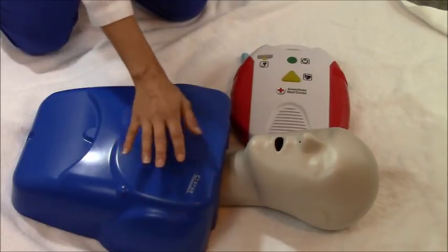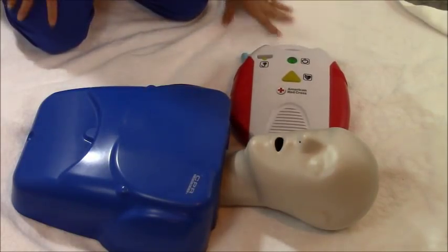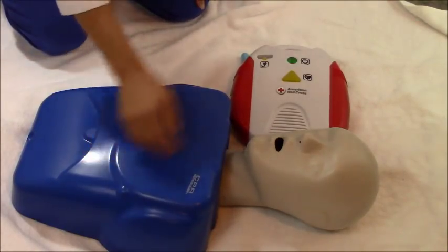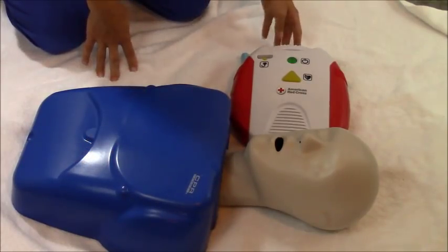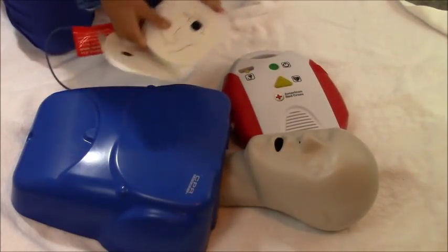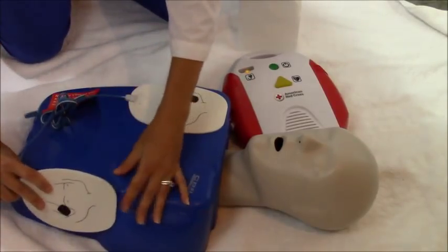If the patient has a transdermal patch — nitroglycerin, morphine, or any medication patch — take it off and wipe the area clean, because it could burn the skin. The first thing to do is turn the AED on. This is a training device, so no shock will be delivered. It will instruct you to remove clothing from the person's chest — which is likely already done since you're doing CPR. Then attach the pads firmly to the chest as shown, plug in the connector, press it down firmly.